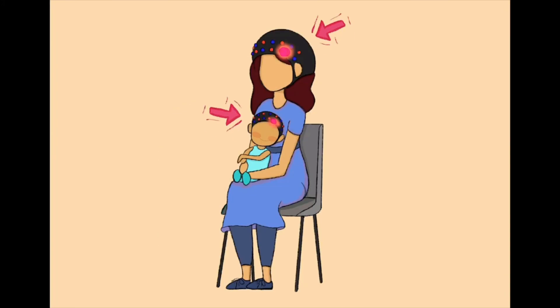fNIRS is not harmful and is very safe. This makes fNIRS also suitable for very young children and even babies. Isn't that cool?